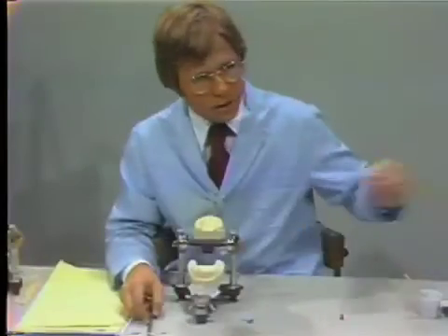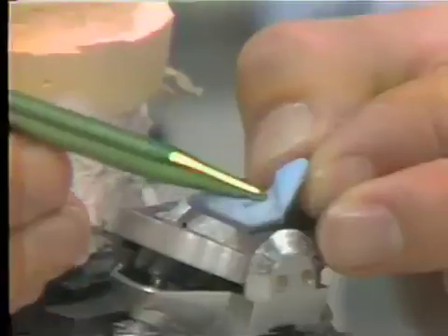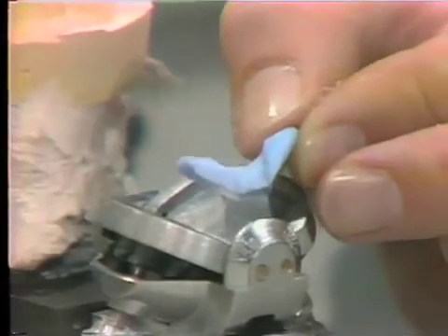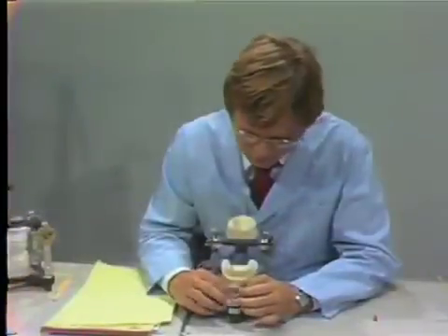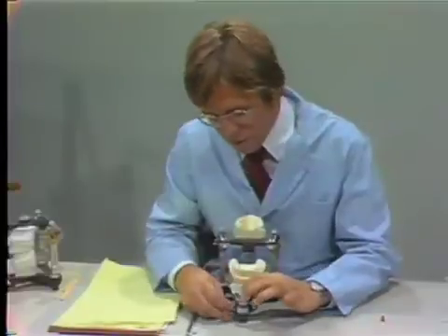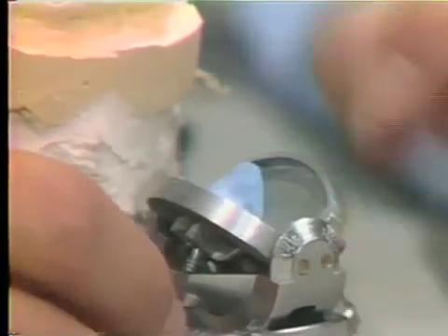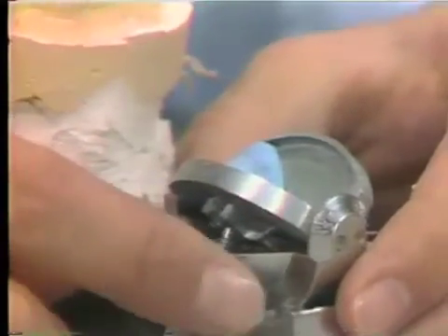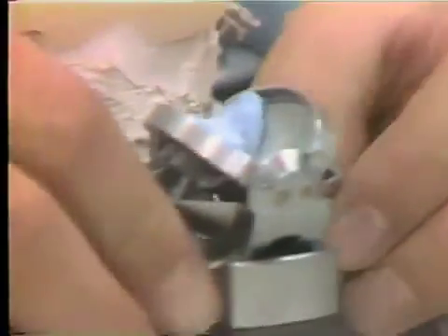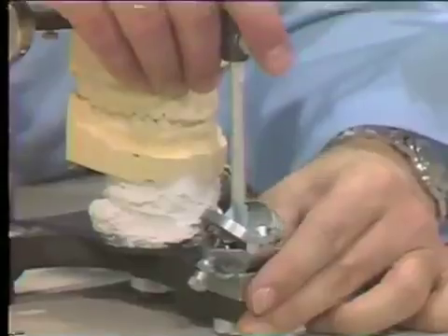After you trim it, it should look something like this. The incisal pin rides up in the protrusive fashion, and then beyond the end-to-end relationship it is flattened out — so it is not incredibly steep. This can be repositioned into the articulator and held in position with sticky wax or a compound of some sort. I am now raising the lateral wings to hold our finished product, and using the thumb set screw to lock that lateral wing in position. The same is done for the other side. Now we have our customized acrylic guide for both the lateral excursions and the protrusive excursion.